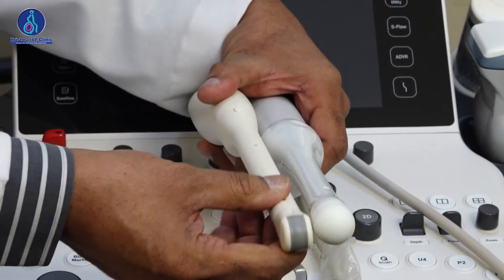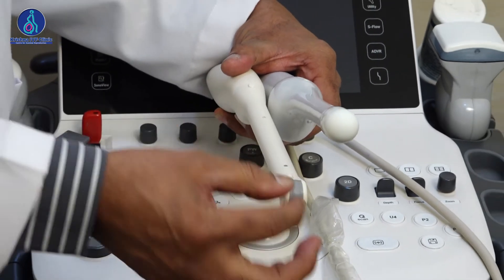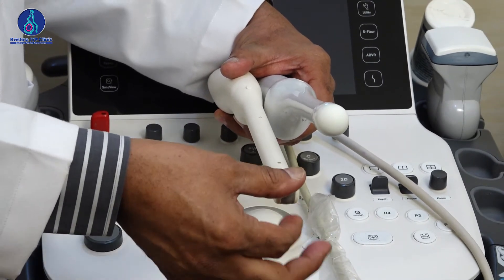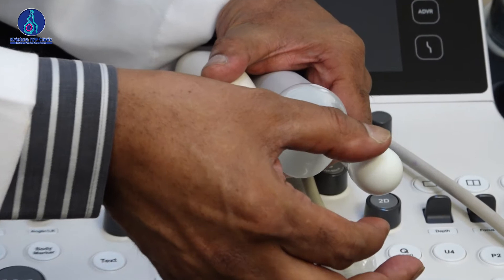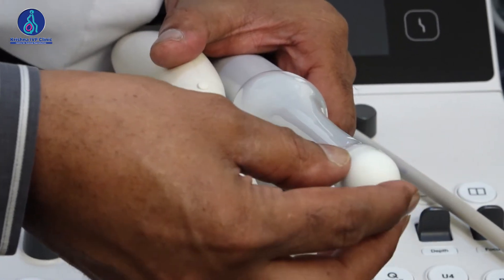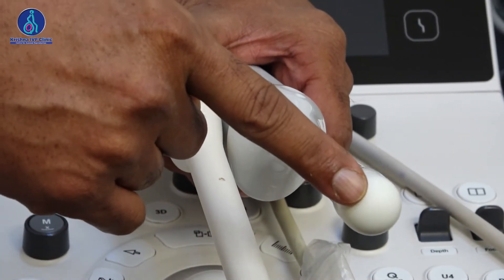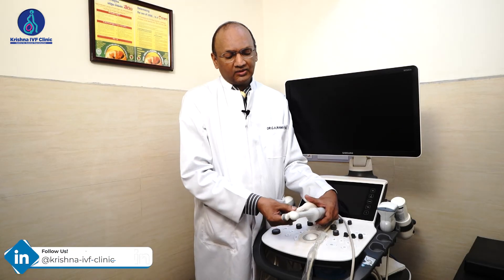When you look at the tip here, the tip has a firing angle of a certain angle, whereas this probe has a multi-dimensional firing angle.